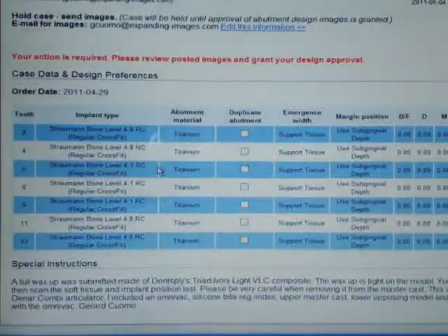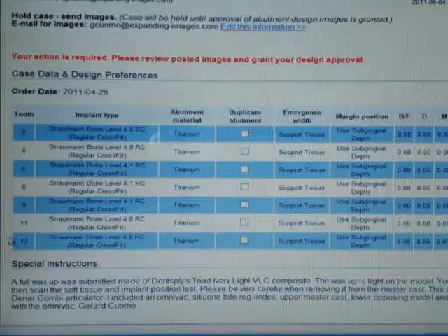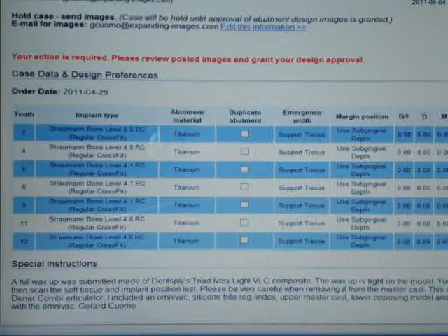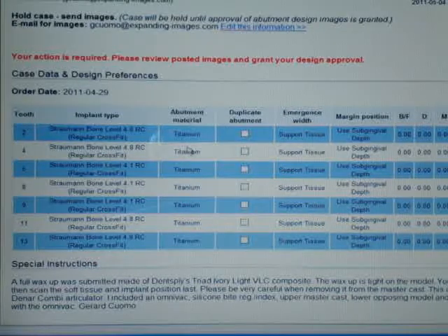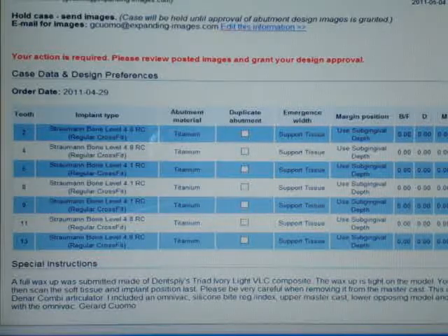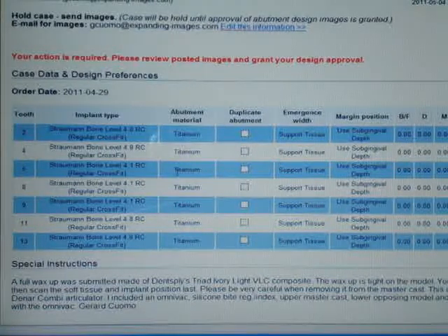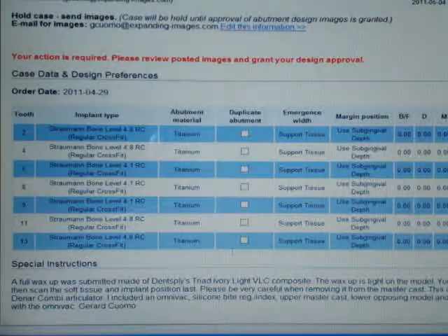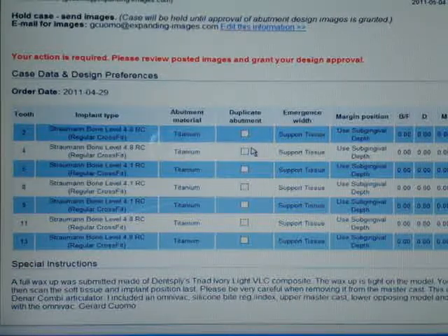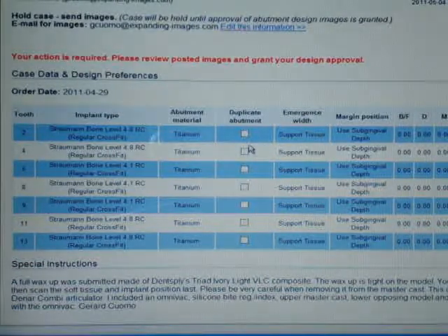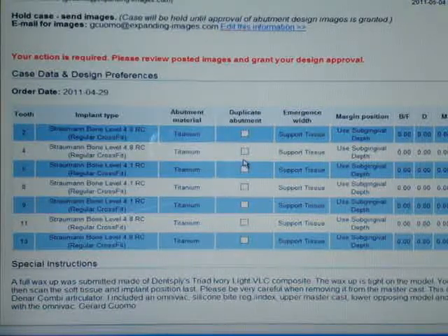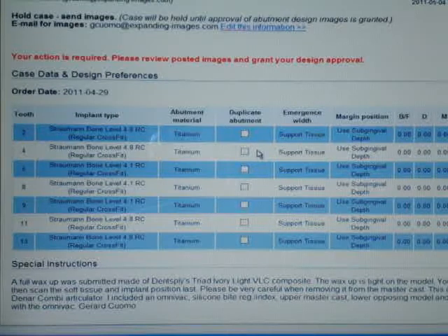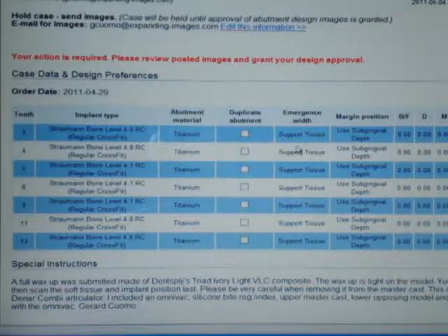Here are the specific tooth numbers listed to the left and here is the implant type, the type of material which is titanium. These happen to be bone level from Straumann RCs. Do we want a duplicate abutment or not? No we don't. I'm not sure still of the reason why you would want two sets of abutments, but maybe you want something more long term and then you would order two sets. And then the emergence width.